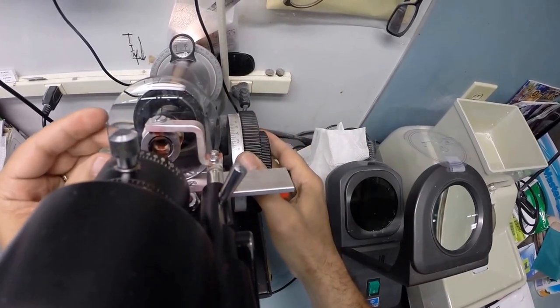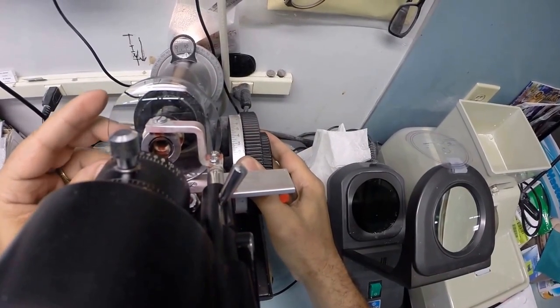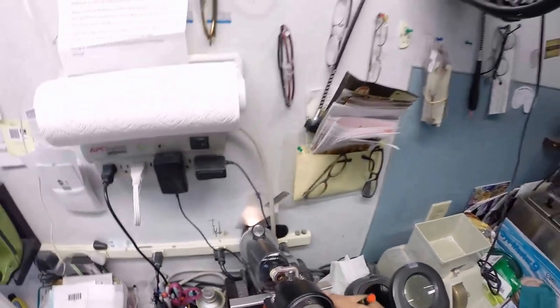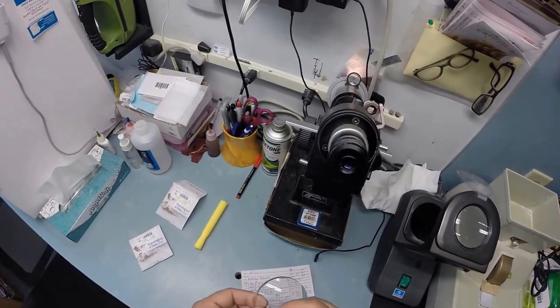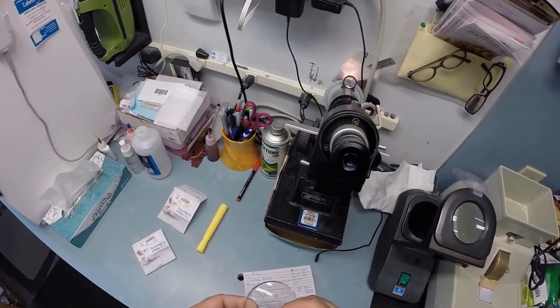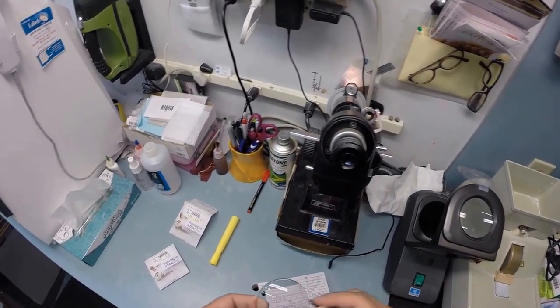Put the lens in, rotate until the sphere power comes in clearly, and check your astigmatism correction of which you only have one step.